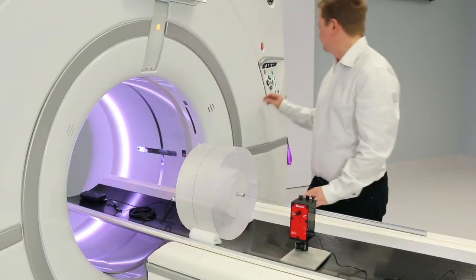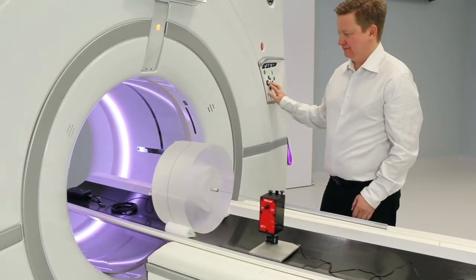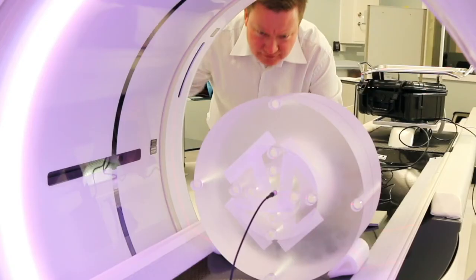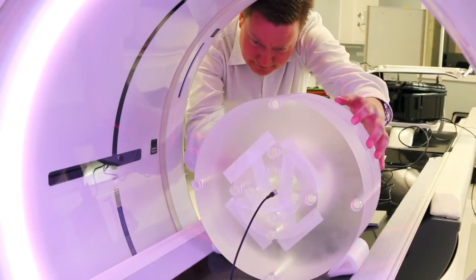Move the table and align the phantom so it is in the ISO centre of the CT. Also verify that the axial laser is in the middle of the phantom.